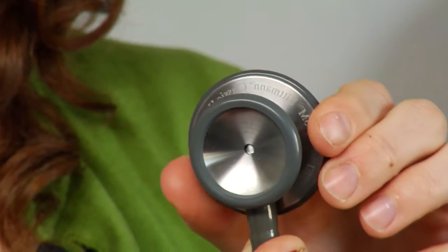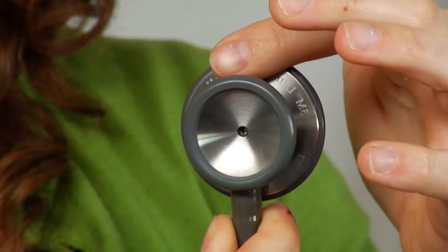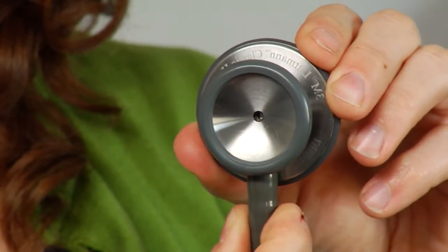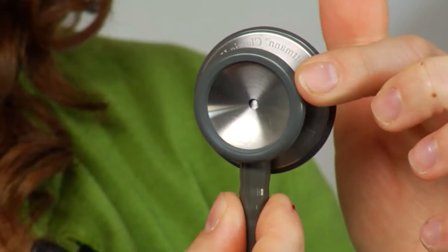And then the other side is called the bell or the open bell, which you're going to hear the low pitched noises. So you're going to do that with cardiac.